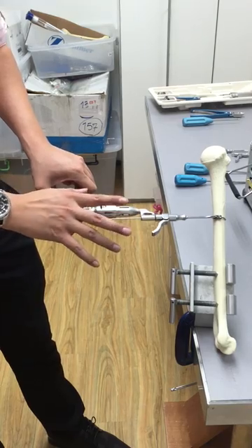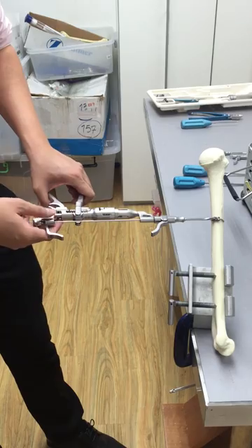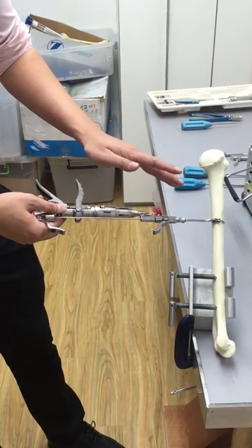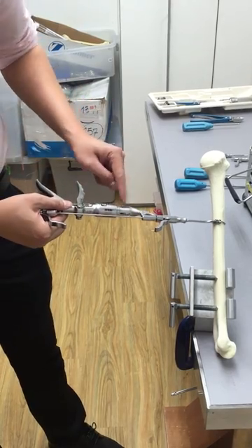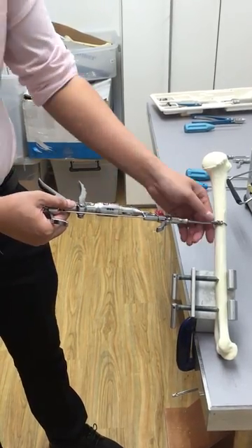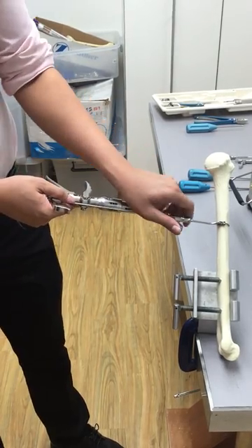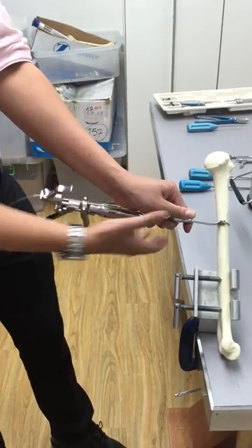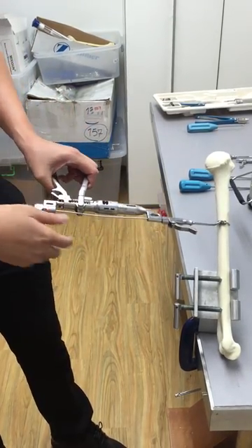There may be a case where you tension it to 100 but it's still very loose. What you're going to do is lock this down and release this — by doing this it locks and maintains the tension at this part.